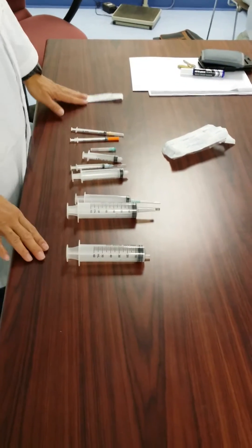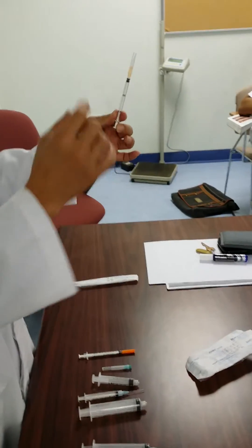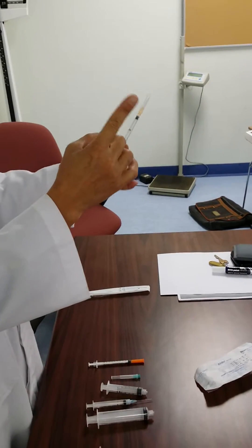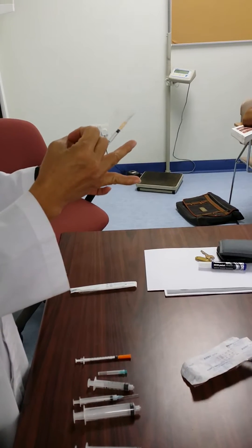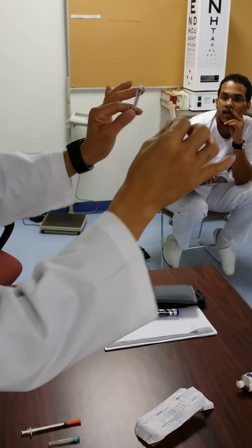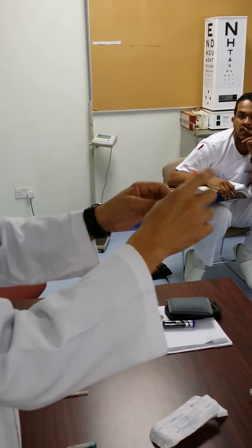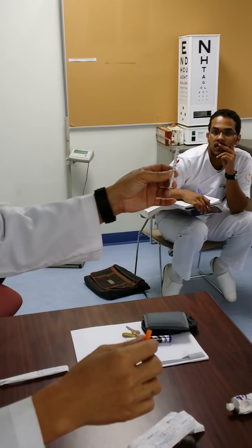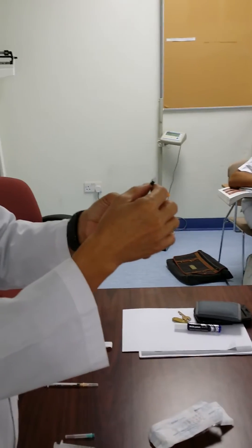This is the evidence that we have — types of syringes. 1ml syringes are used for patients for skin tests or for pediatric injection. The difference with this one is you can change the needle. This is 1ml. Insulin syringes — you cannot change the needle, because this needle is fixed to the plunger. You can only change the needle in 1ml syringes.